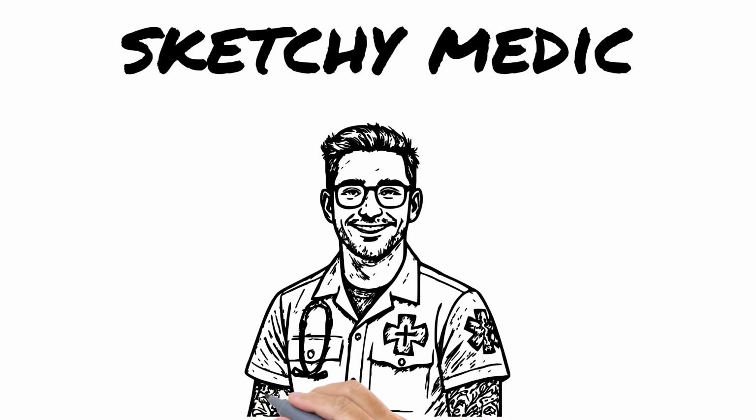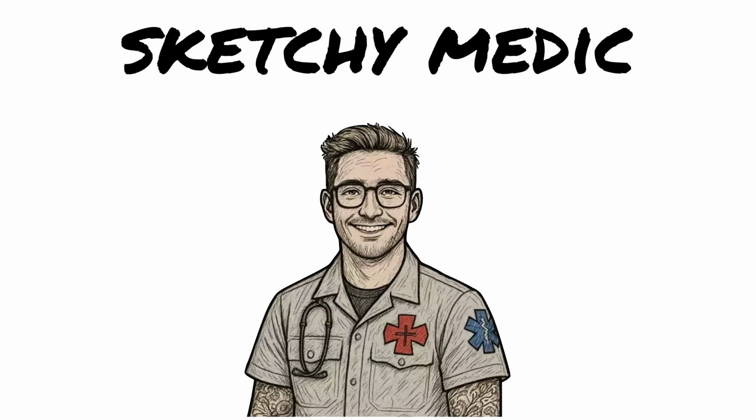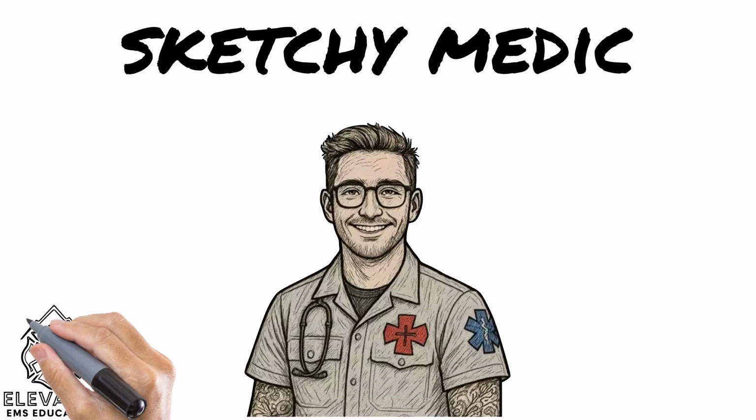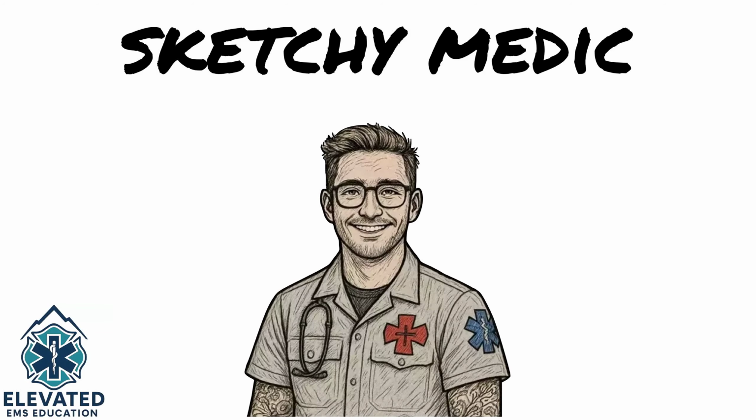In this Sketchy Medic lesson, we're covering one of the most powerful life-saving tools you'll ever use, the AED. Whether you're a new responder or taking BLS for the first time, learning how to use an AED correctly can mean the difference between life and death.